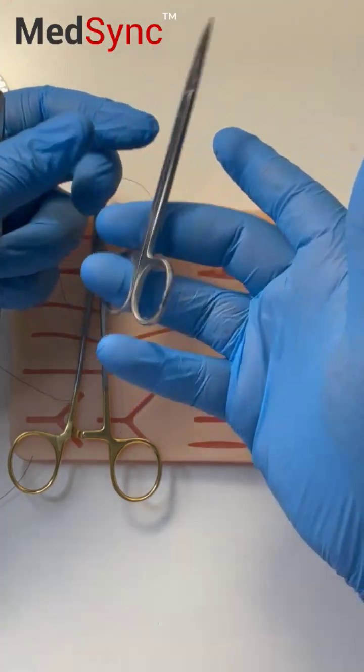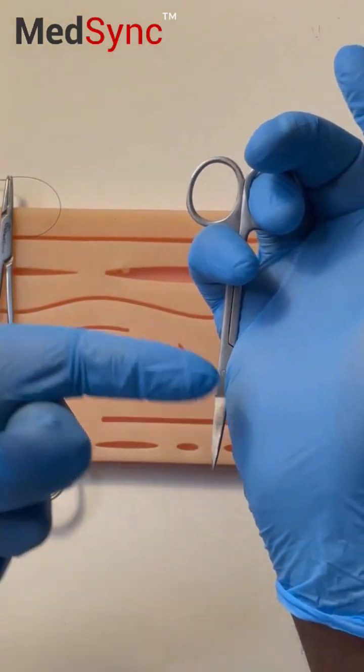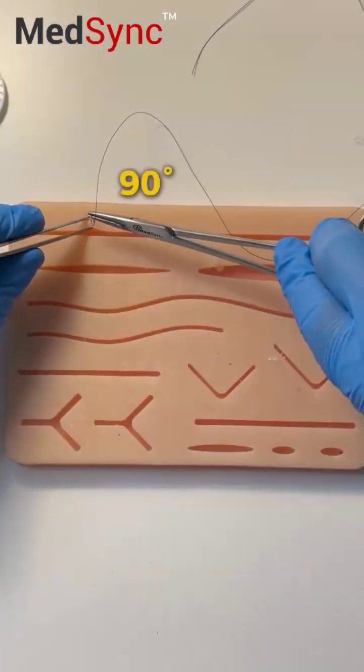Put your ring finger in and turn the scissor downwards towards your palm. Have it on the side so it doesn't go into your hand. Enter at 90 degrees.